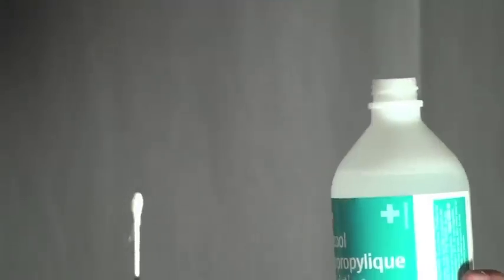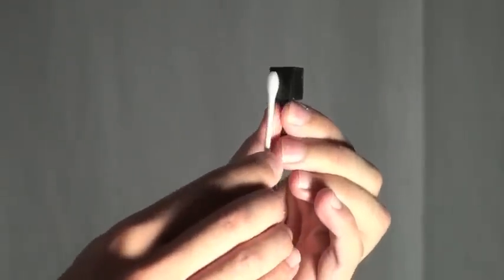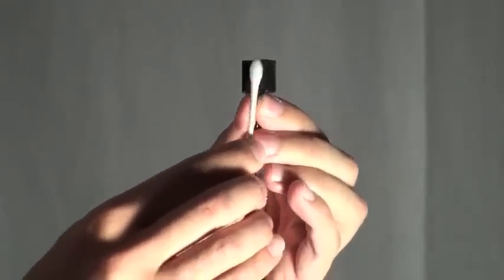To clean the sensor, wipe it with an alcohol swab. If it isn't cleaned often enough, the signal will weaken.